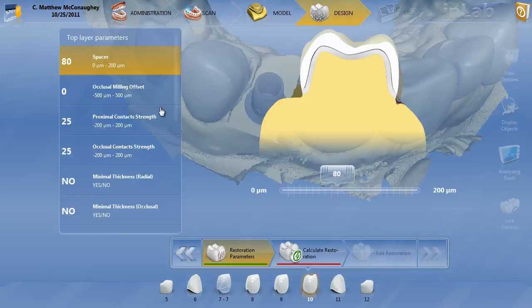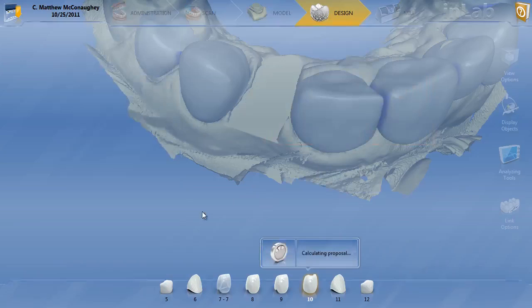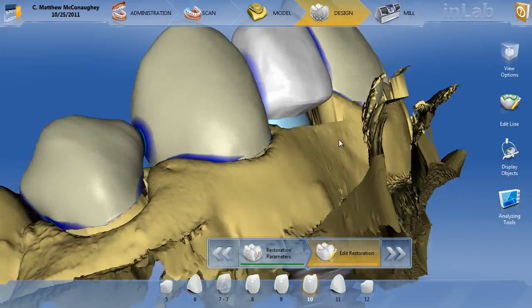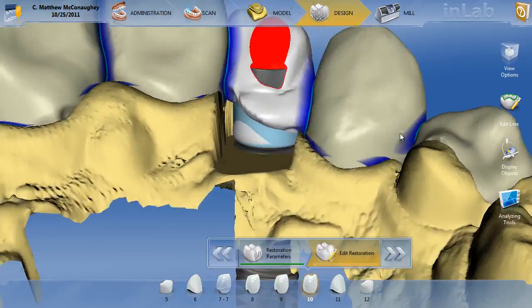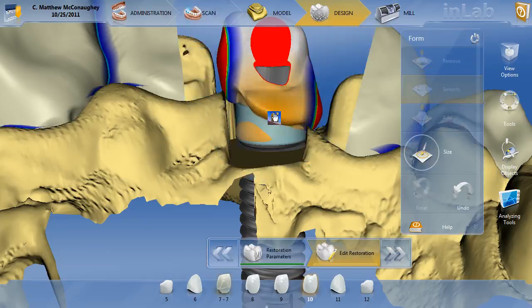Before the design step comes up, we have our parameters here — just go ahead and set these as you normally would. I'm going to switch the shoulder width; if that tissue is going to be thin there, we're going to need this pretty narrow. We always can change it if necessary. So we'll go ahead and get our proposal. Here's my initial proposal — I've got some pretty big minimal thickness area problems down here. The wax-up was much more buccal, so I'm going to need to make a transition up here to correct that. I would probably start with my smooth tool and start smoothing this down, getting this a little bit better, and then go in with our shape tool.